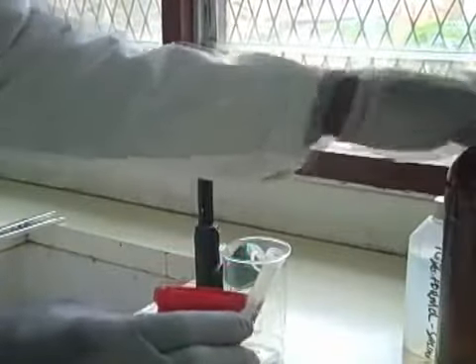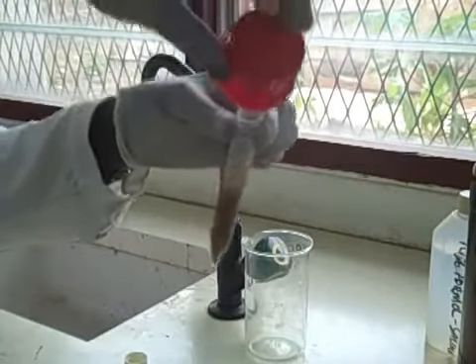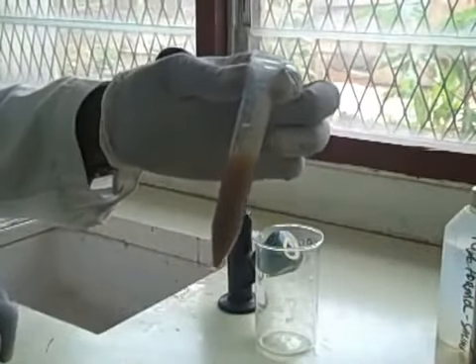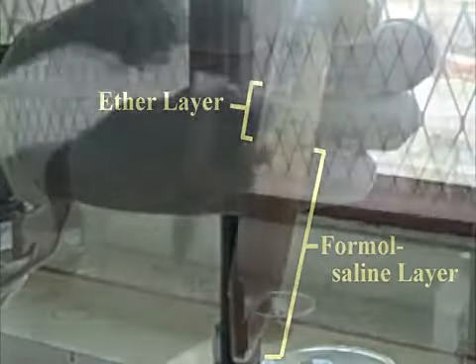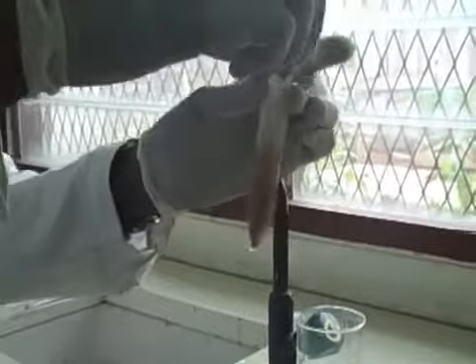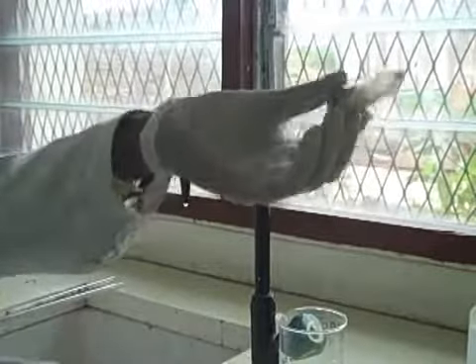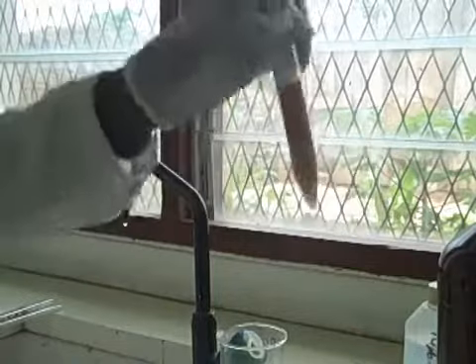Add 3 ml of diethyl ether to the 7 ml of the stool filtrate in the 15 ml centrifuge tube, making a total of 10 ml. And you will see 2 layers, the ether layer and then the Formol saline layer. Cover the centrifuge tube with the lid and mix the 2 layers very well. And the ether is to dissolve any fat which is present in the stool sample to release the parasites.